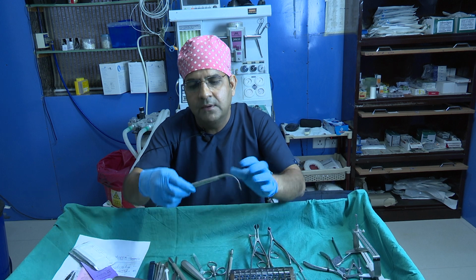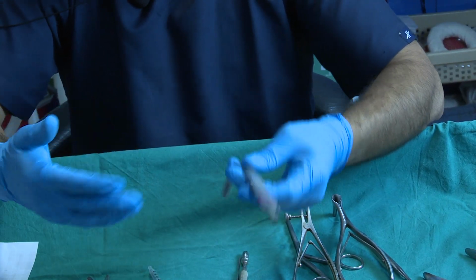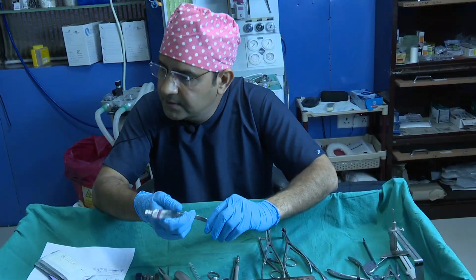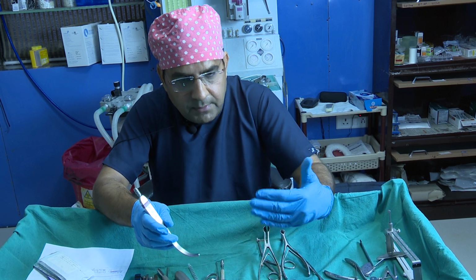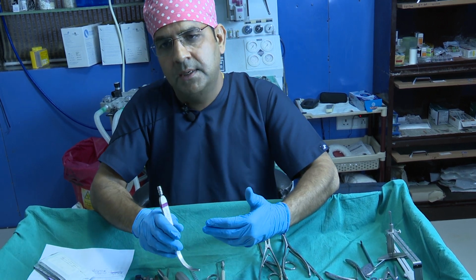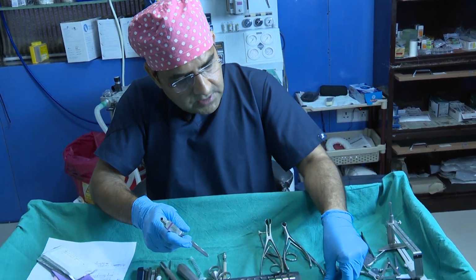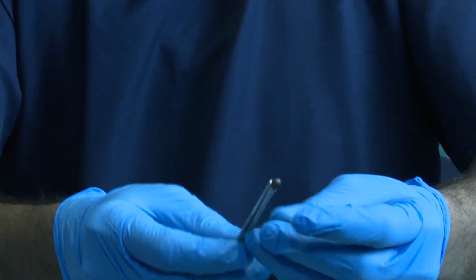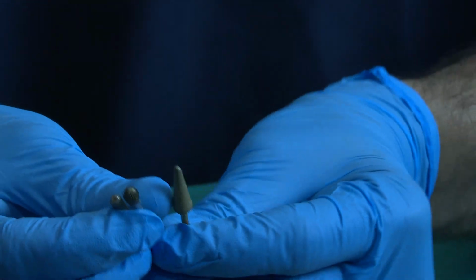This is also the suction periosteum elevator. After the evolution of preservation rhinoplasty, this type of instrument is very useful, because sometimes when you have a big bump and you use different types of burrs for the rhinosculpture, I use these different types of burr. So this is the conical burr, this is the cutting burr, this is the cylindrical burr.